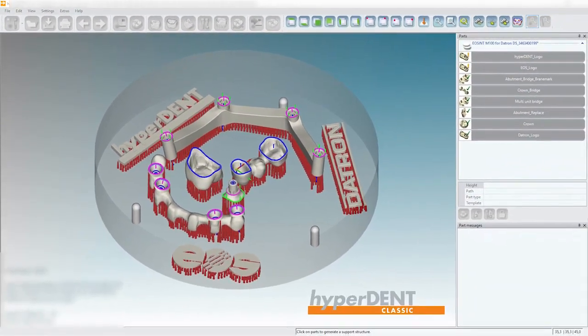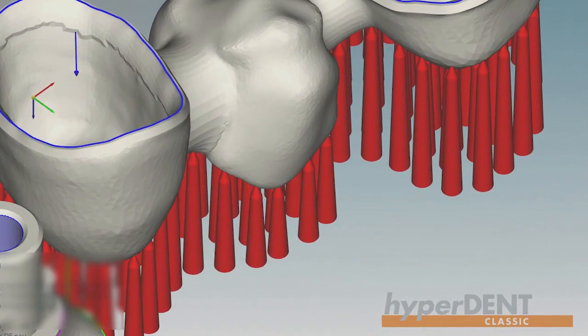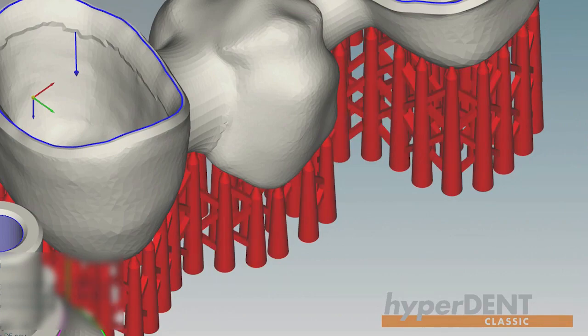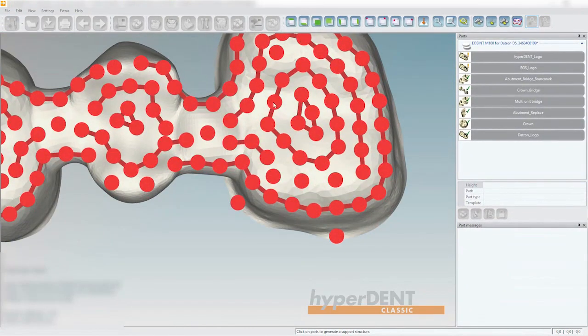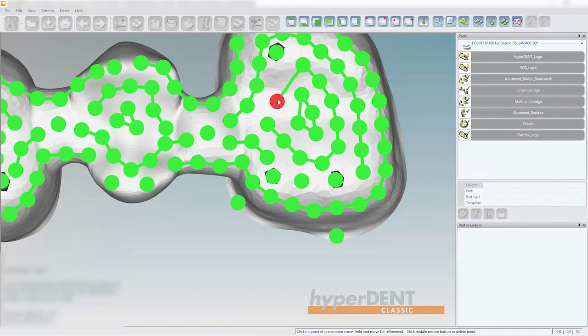Create supports of different shapes, for example, cones, cylinders, or grids. Of course, you can also delete or drag and drop existing supports and create additional support pins.